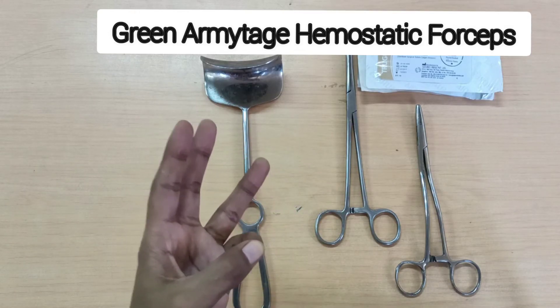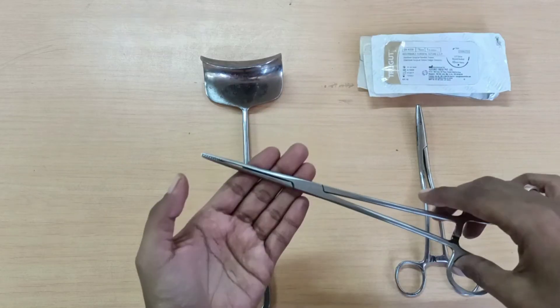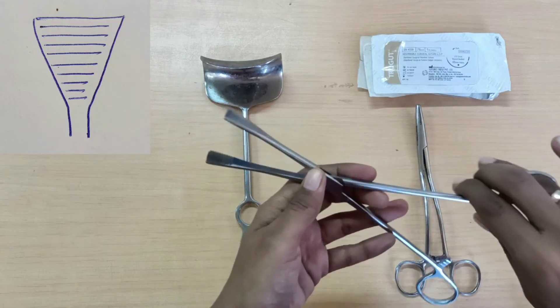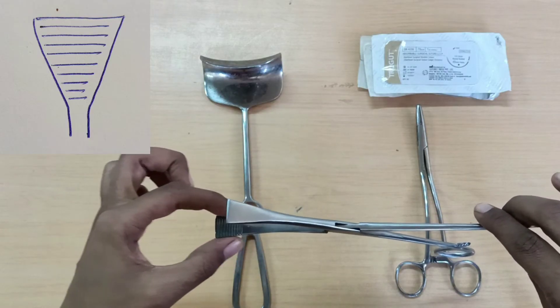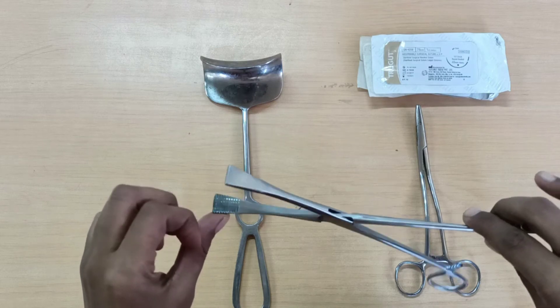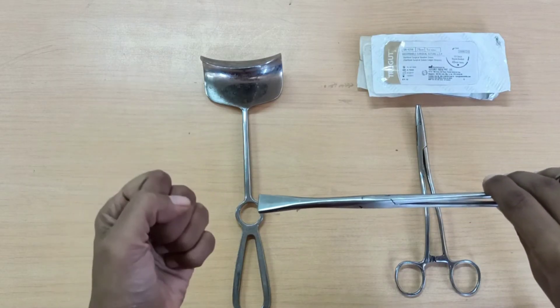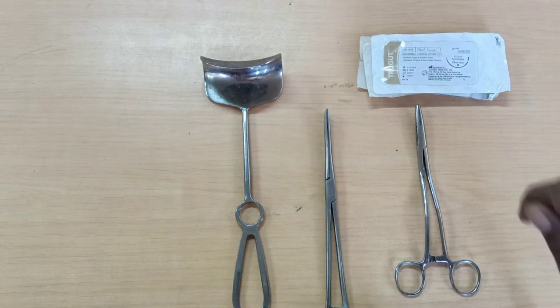One Green Armitage forceps for the upper edge, one for the lower, and two for the angles. It has a lock, and at its working end it is triangular in shape, flat, with horizontal transverse serrations inside. It is basically atraumatic and achieves very good haemostasis over the bleeding uterine edges.